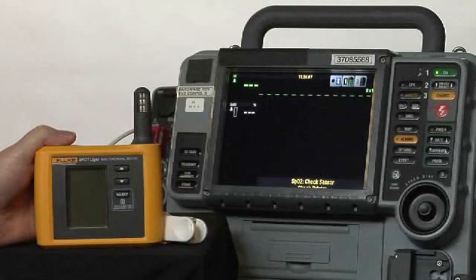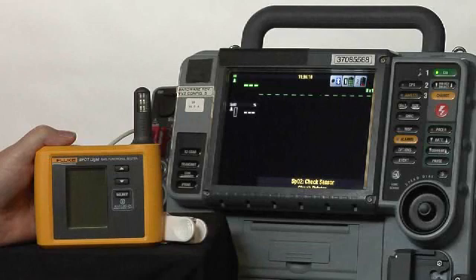Introducing the ProSIM Spotlight SpO2 Functional Tester, the newest member of the ProSIM family.